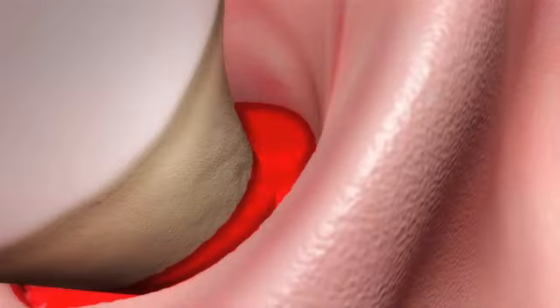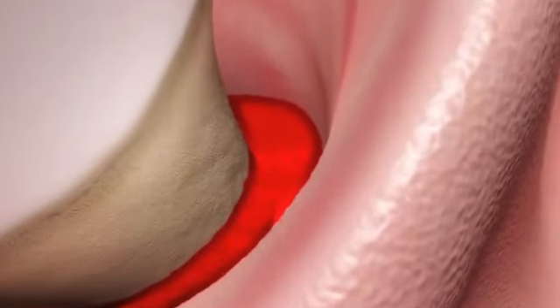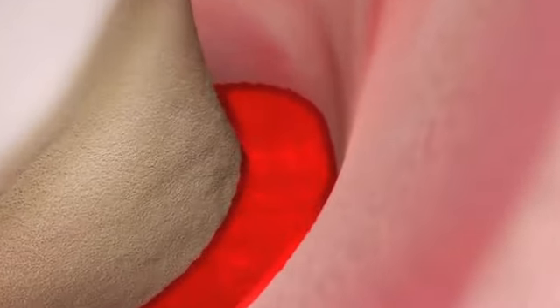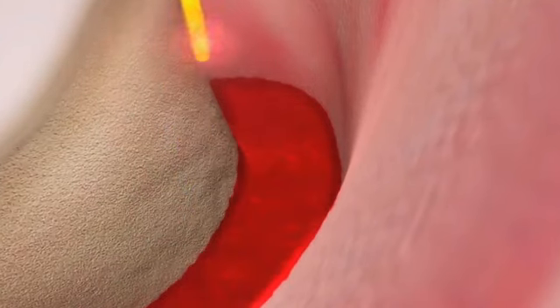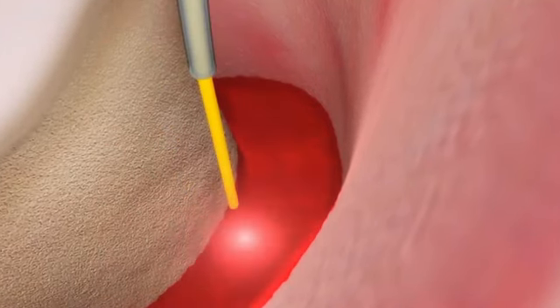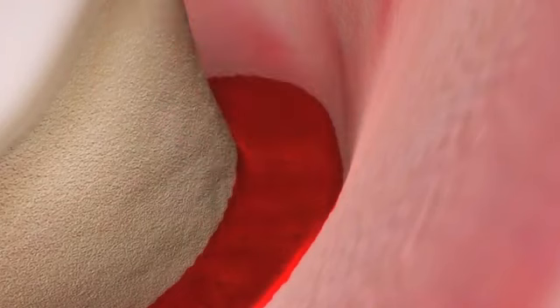Without a great blood supply, our clot cannot mature. Then, we again introduce ND YAG laser energy in the pocket to start development of the clot. We insert the tip all the way to the bottom of the pocket, then we fire the laser and draw out the tip until we see the blood start to get slightly darker.